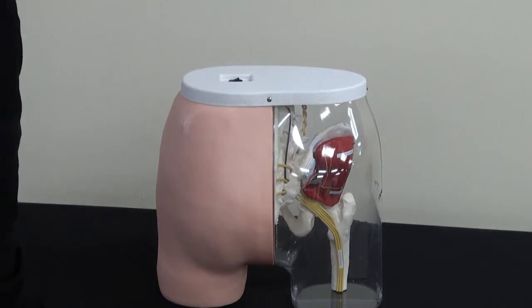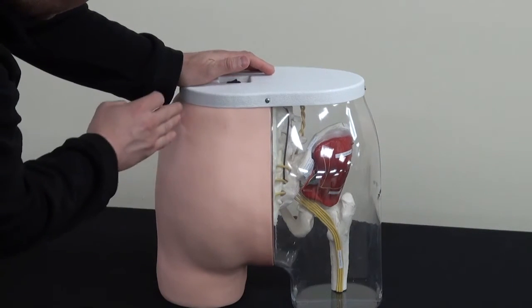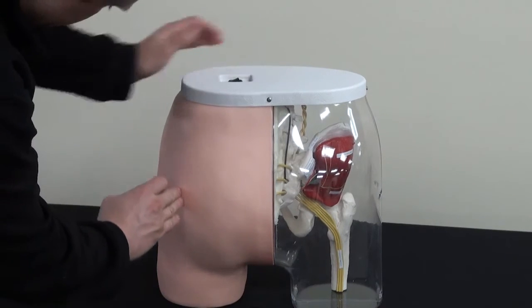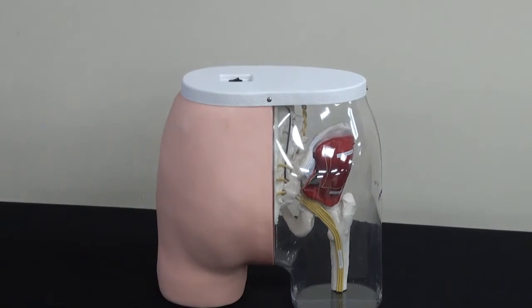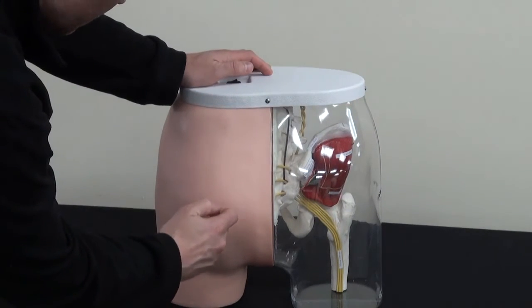And then you want your four quadrants here, and here, and down through there.